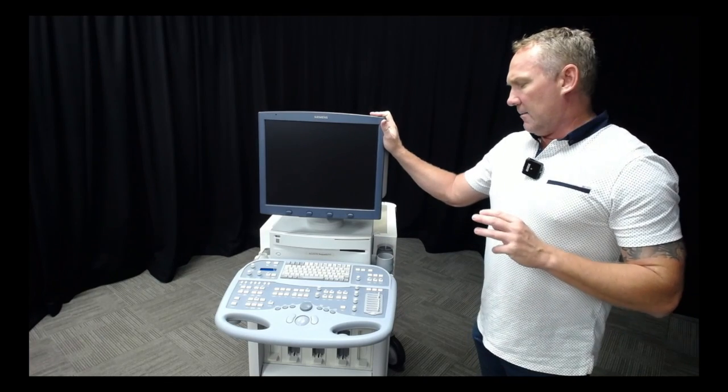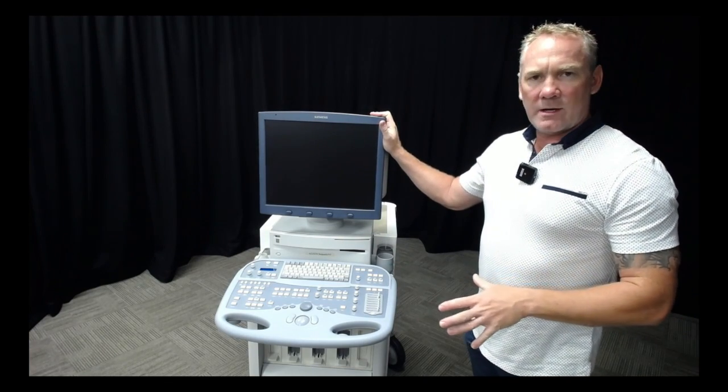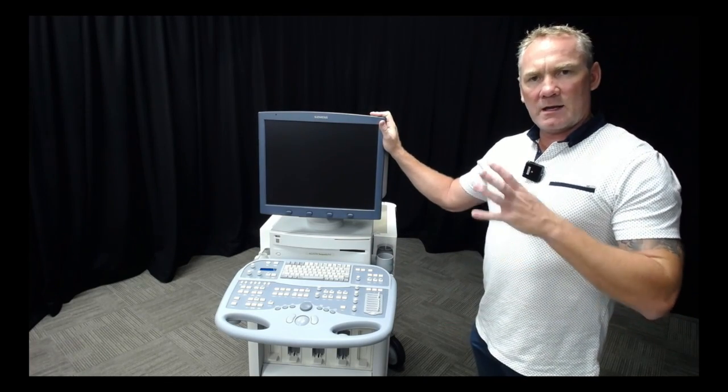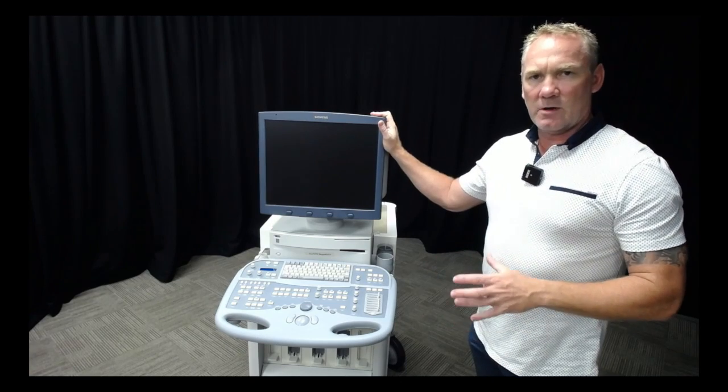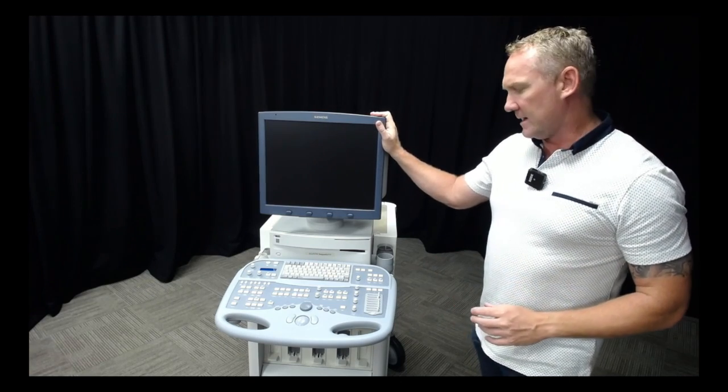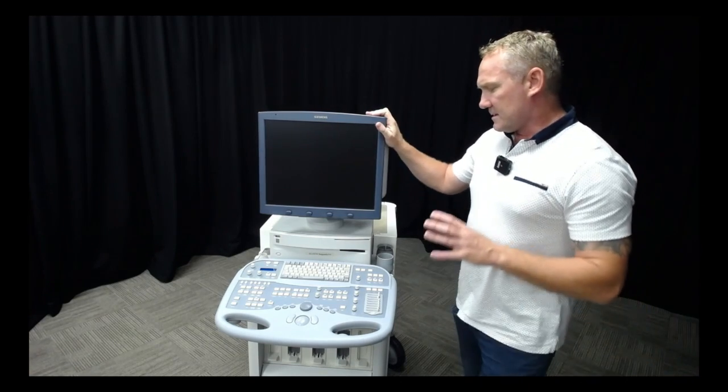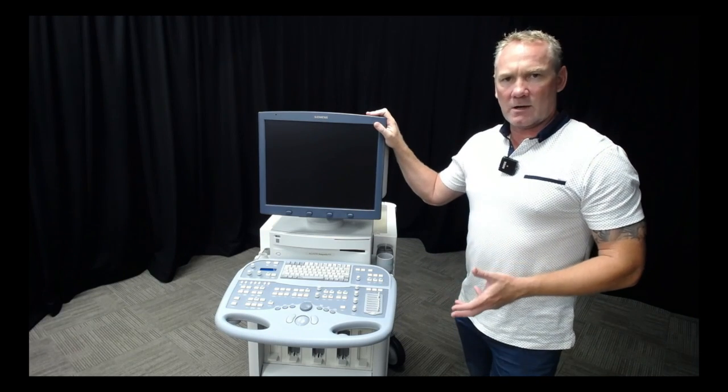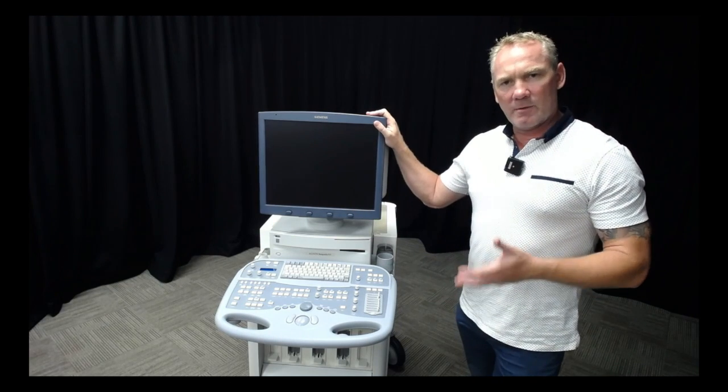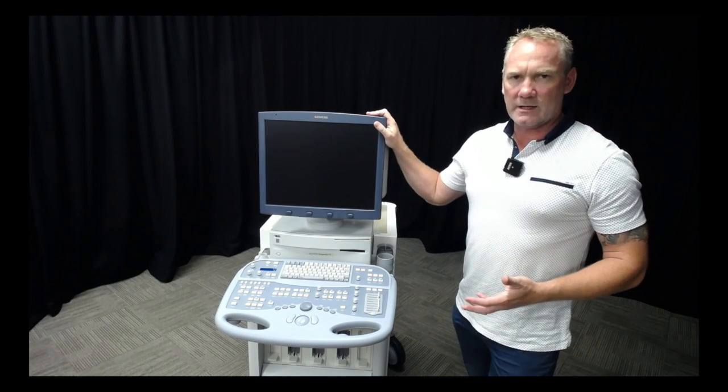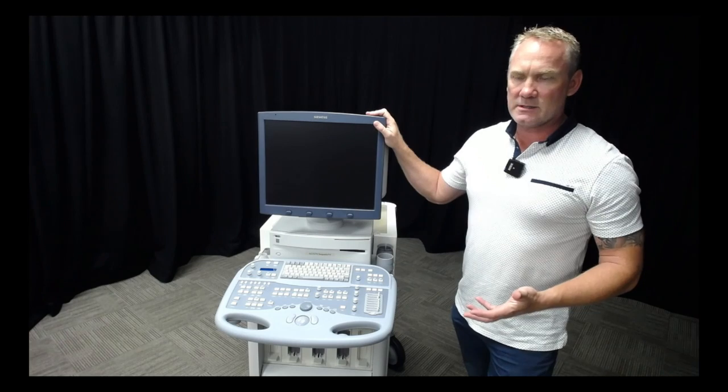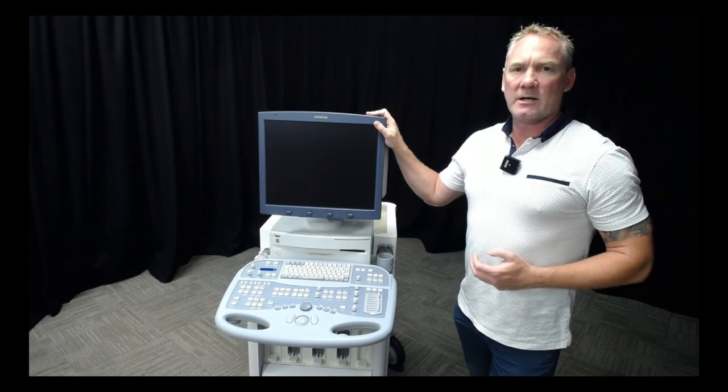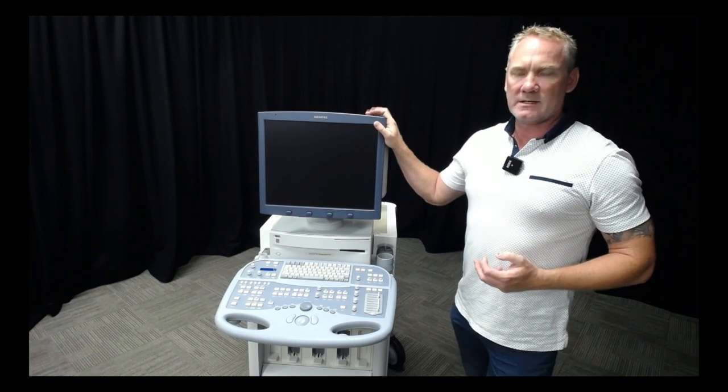This is a 15 year old machine that looked pretty grubby to start with, but its insides are still working absolutely perfectly. If you look after your machine, it's going to look after us. Remember, this is what we're relying on to get good quality data for our studies and patients.